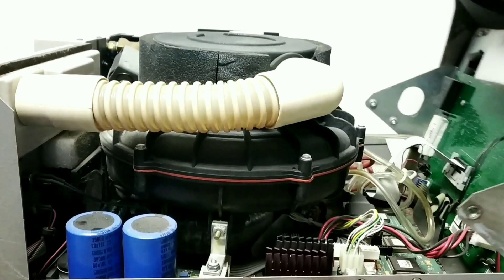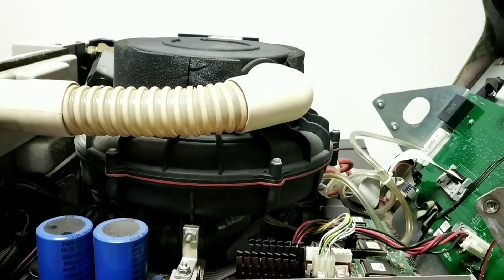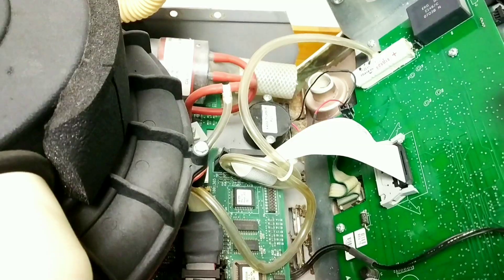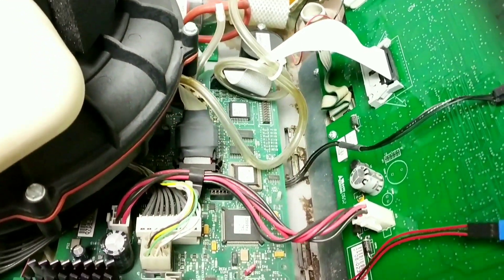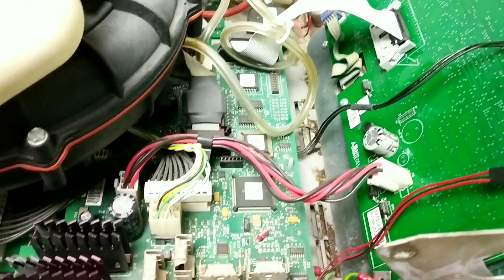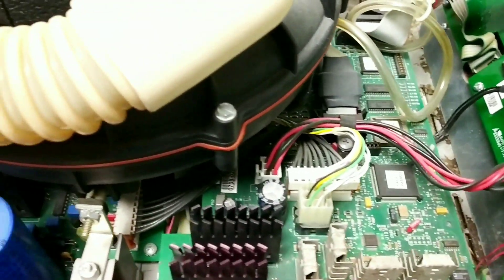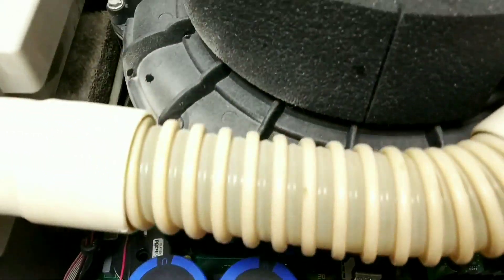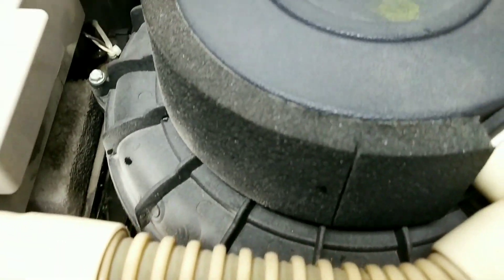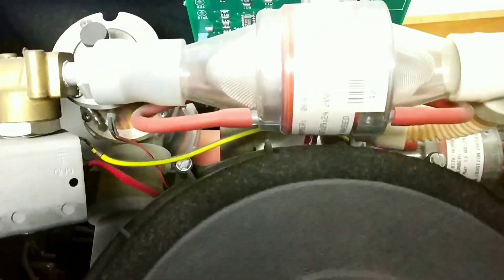In this video we will open up the ventilator and show each part, relating it with the block diagram that is in the service manual. We will be cross-checking and identifying how it looks on the block diagram and how it looks in the real-life situation.